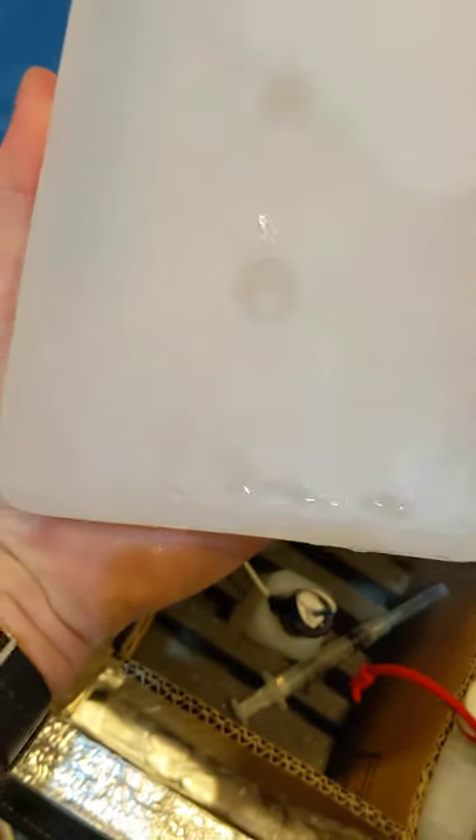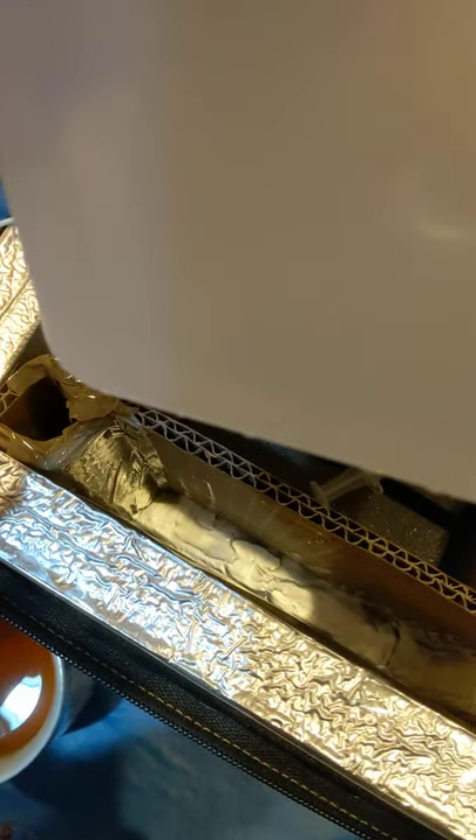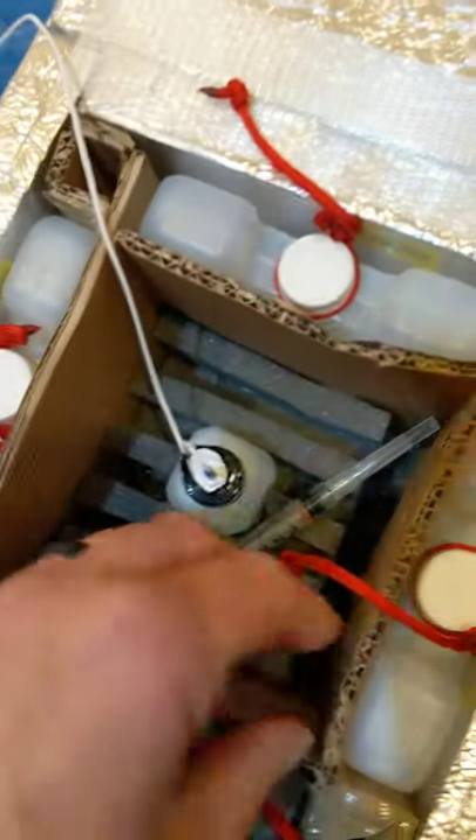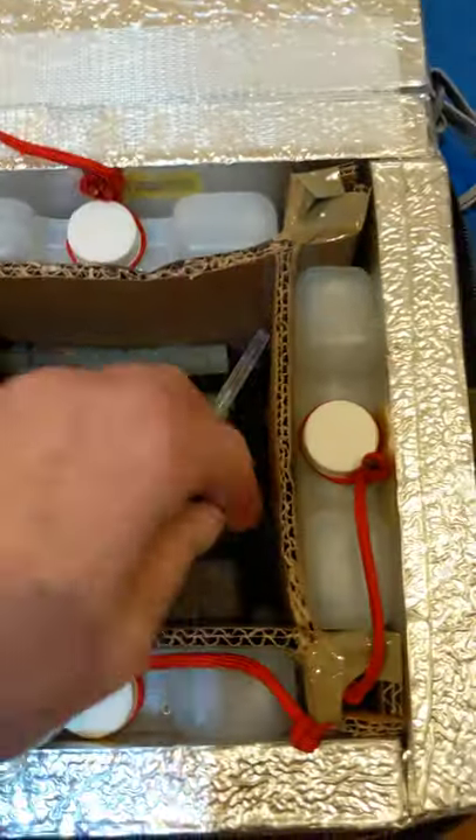This one also has some condensation — you can see some moisture on the cardboard on the inside. The cooler should be stored periodically where the air can circulate and dry it out. It's not clear whether the condensation is on the outside wall or on the inside cardboard. This cardboard looks pretty dry and the condensation on this ice pack was on the exterior surface. Overall, for periods of four to six hours at a time, this unit is looking okay.